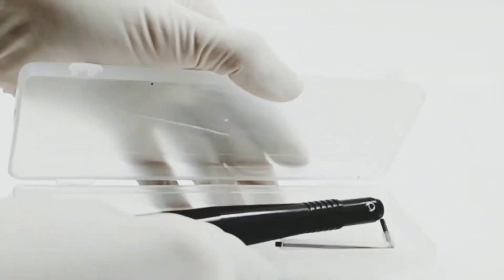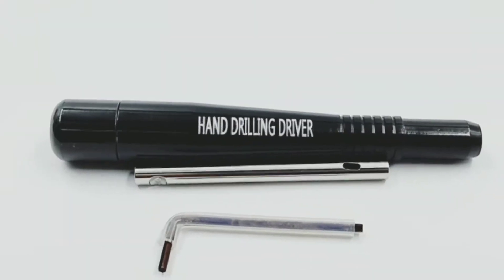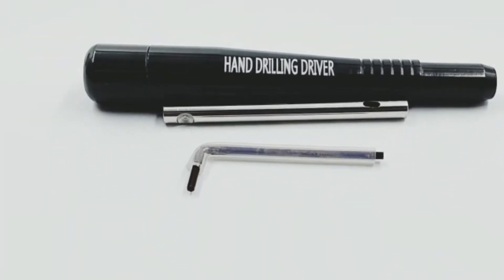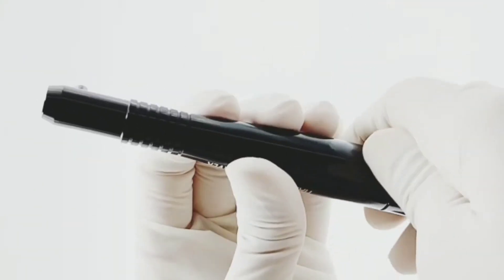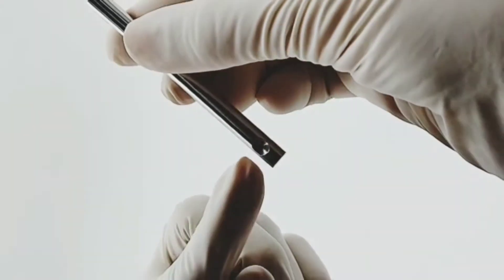Implant surgical drivers allow for manual implant placement with tactile feel and good control of implant insertion direction, especially suitable in the anterior region.